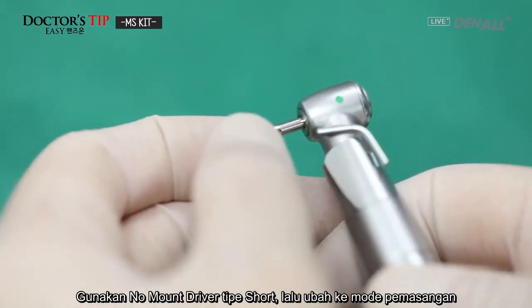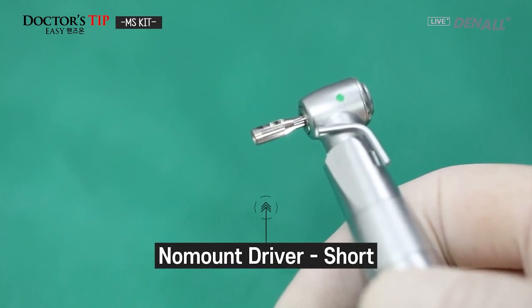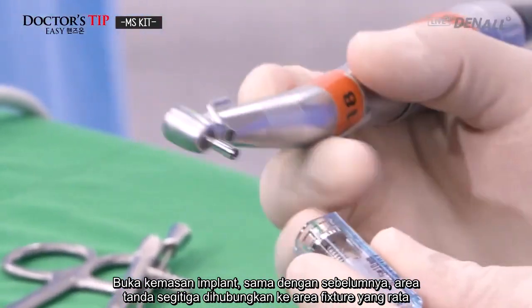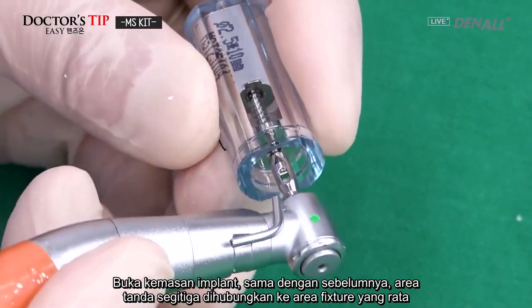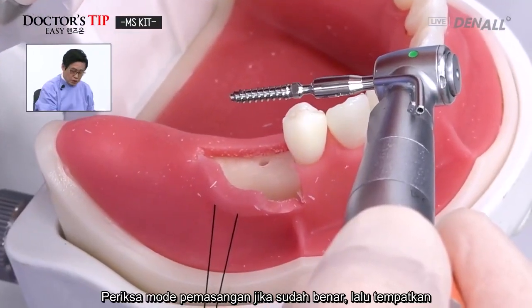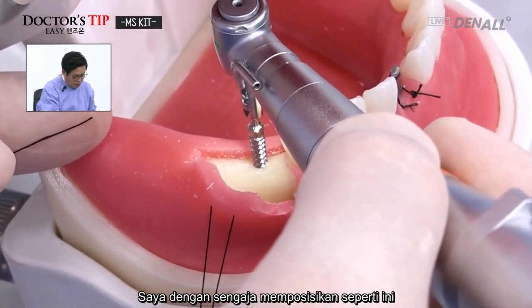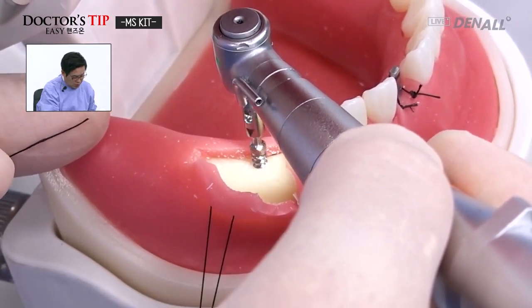And again, change the mode for placement. Open it. Same again. Even if it's provisional, the marked area connects to the flat area of the fixture. And check the mode, whether it's the correct mode, and then place. I intentionally, as I said, gave it an angled position. Like this.